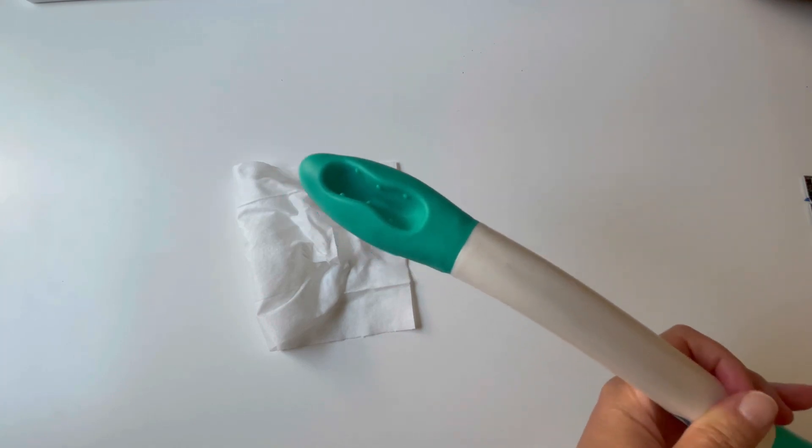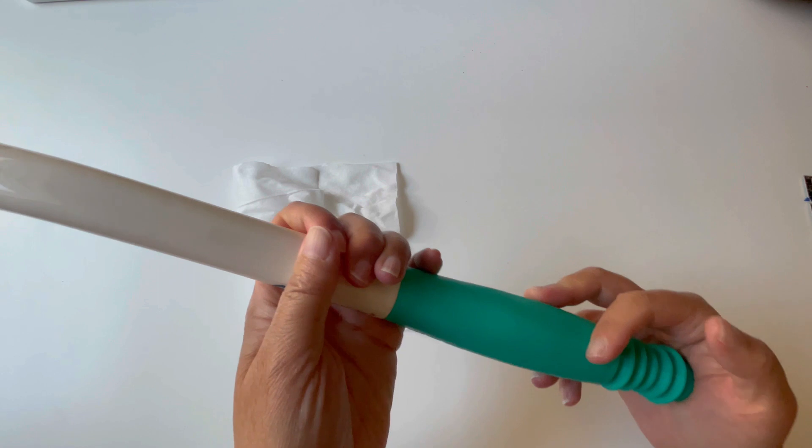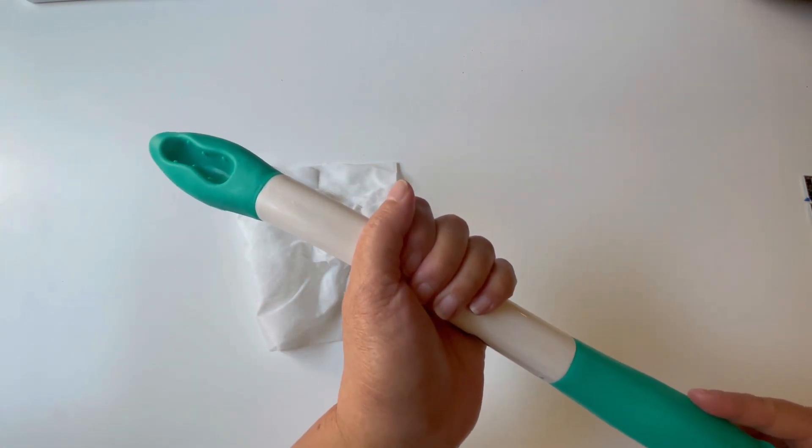I can tell that the mechanism is very well made. It provides a firm resistance and with the way it bounces back to reset back to the original position.